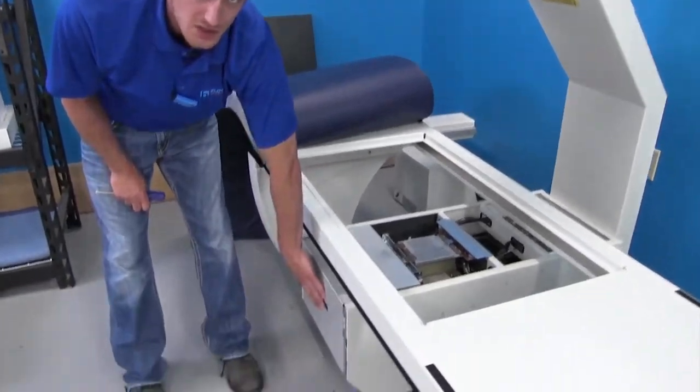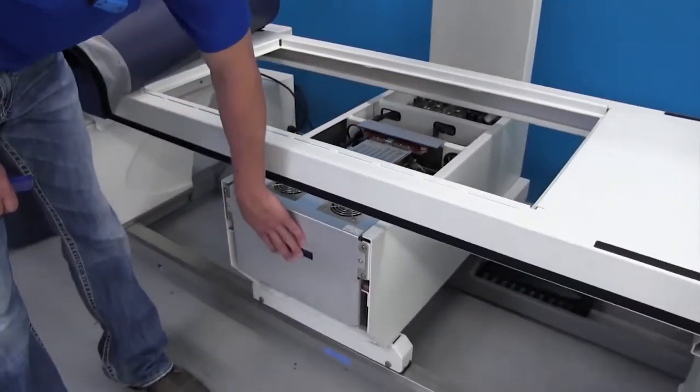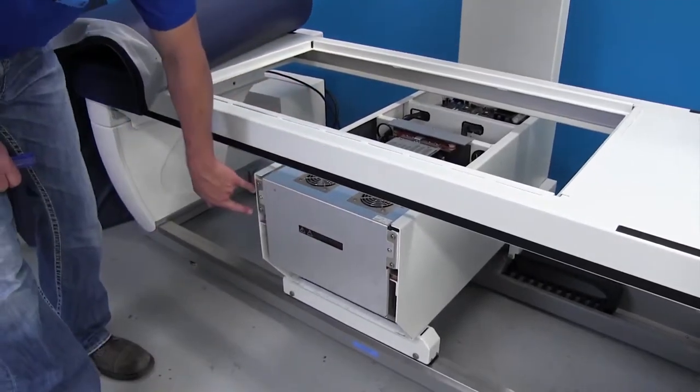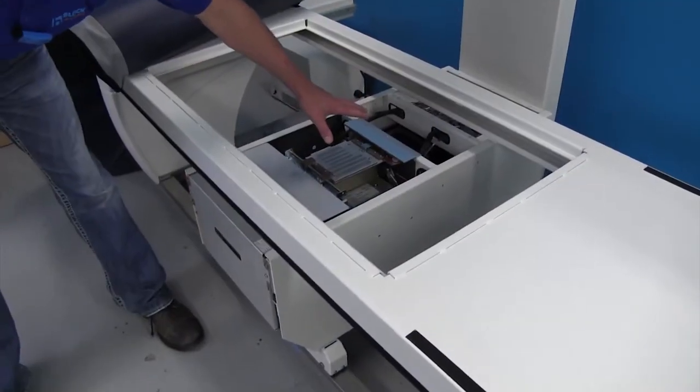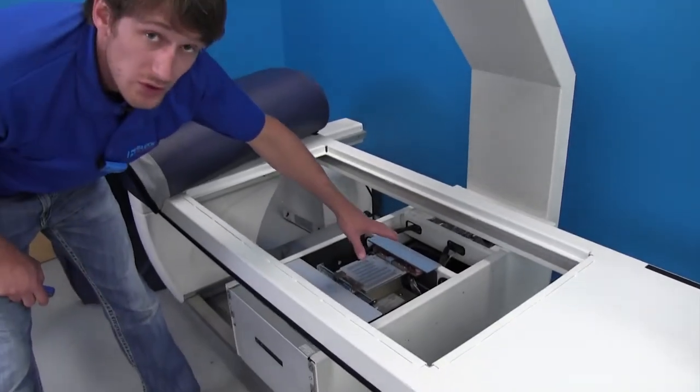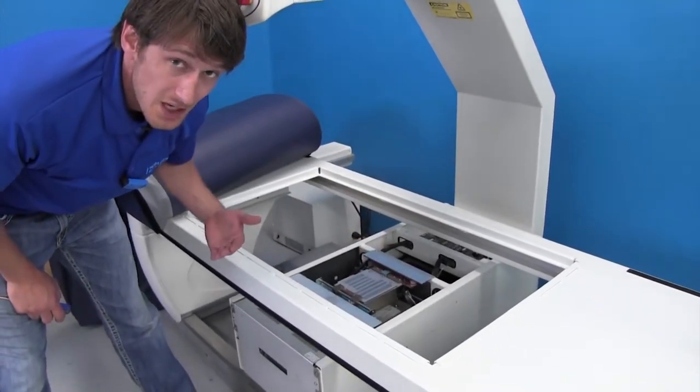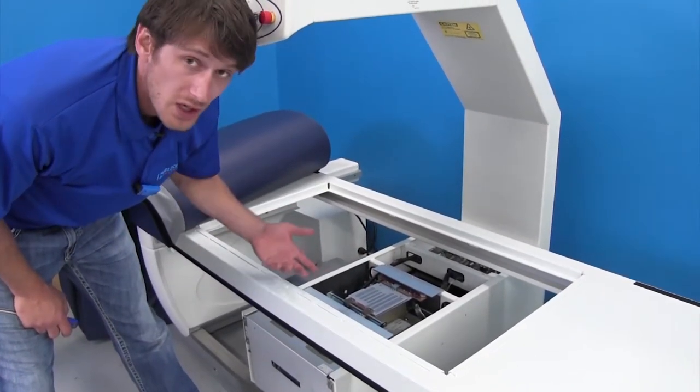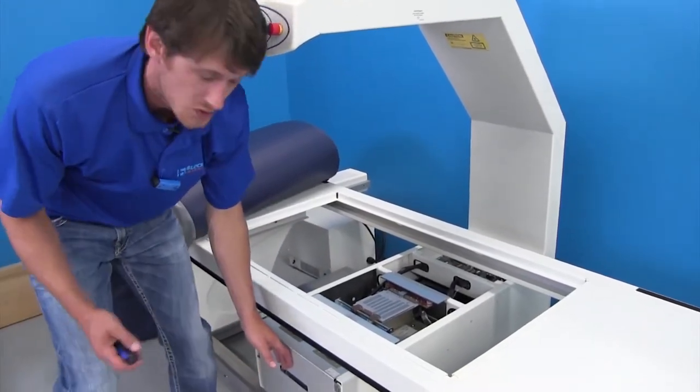Looking at your XRC in front of the tank, this is held on by two screws here and two screws here on this side. Also your aperture assembly and your filter drum will need to be removed to safely get the tank out of the system. I will show you how to do that after we remove the XRC x-ray controller.